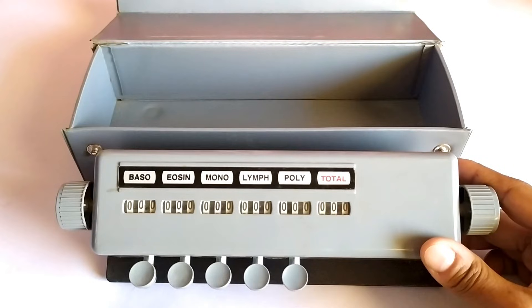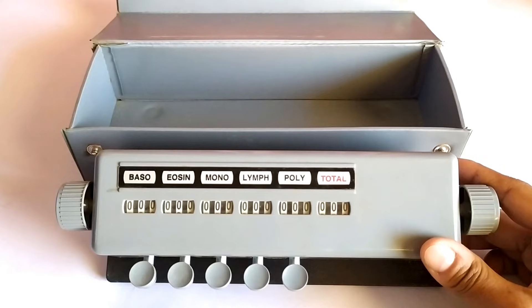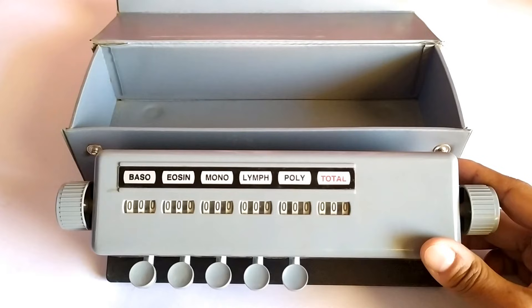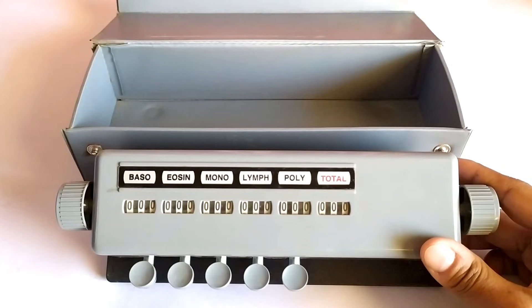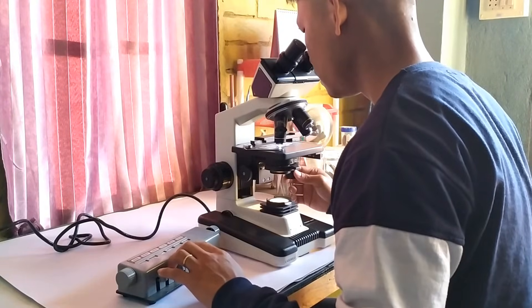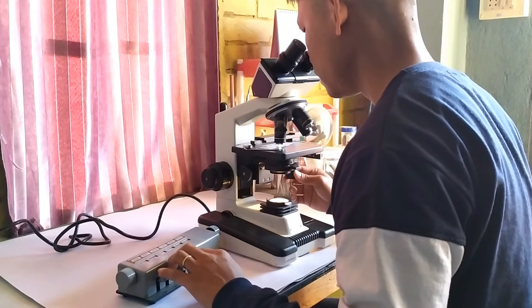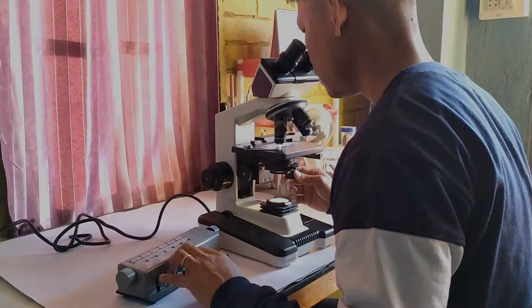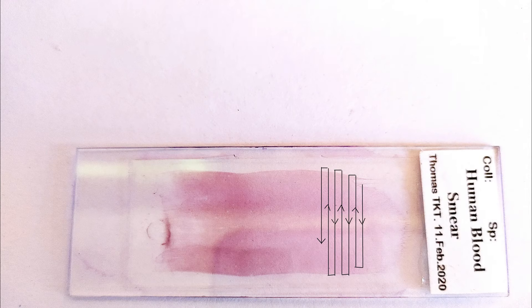In DLC, 100 cells are usually evaluated. A convenient feature of the cell counter is that once the total count reaches 100, the counter makes a single loud ring using its inbuilt bell, allowing undisturbed counting without having to constantly check whether the total has reached 100. When counting the cells, make sure to follow the pattern of counting on the slide as depicted by the arrows in the photo, ensuring both central and peripheral areas of the blood smear are included.